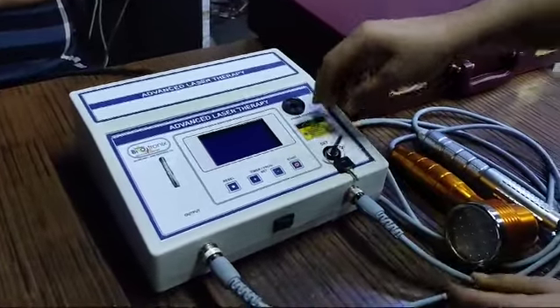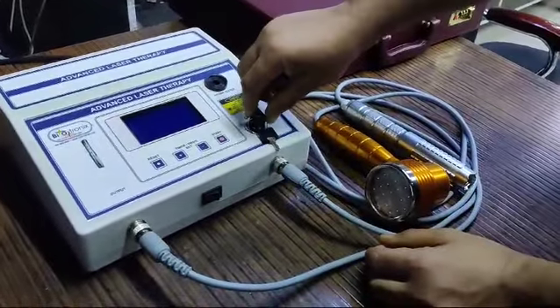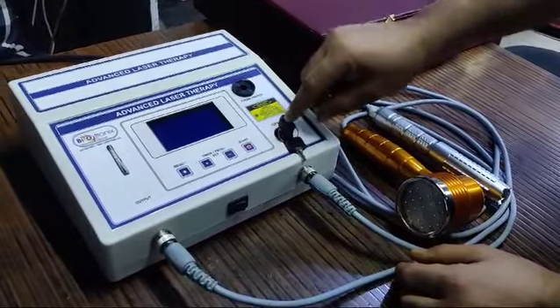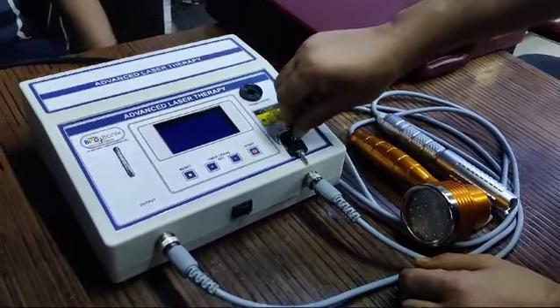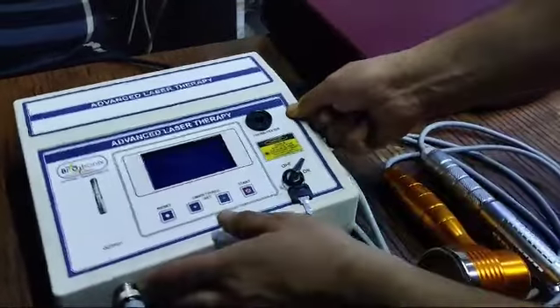Advanced laser therapy. This is the key to start and stop. If I put the same in off condition and now putting the same in on condition, I'm switching on the machine.